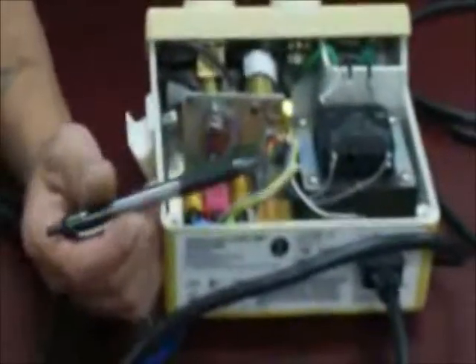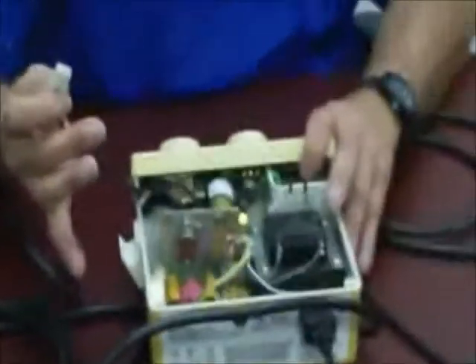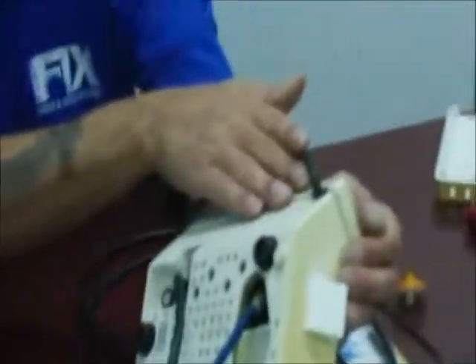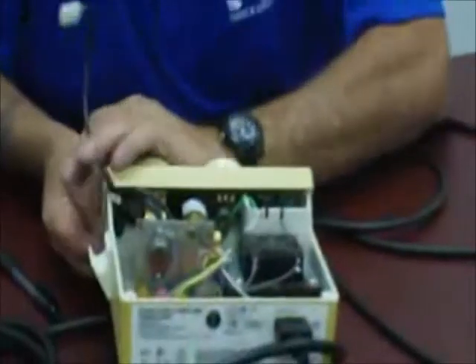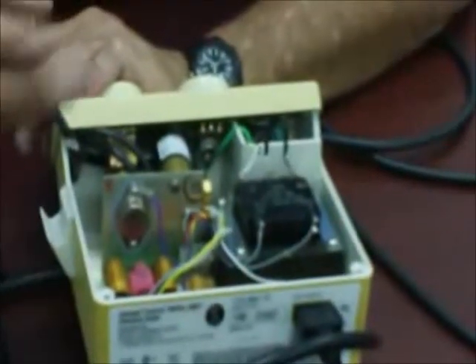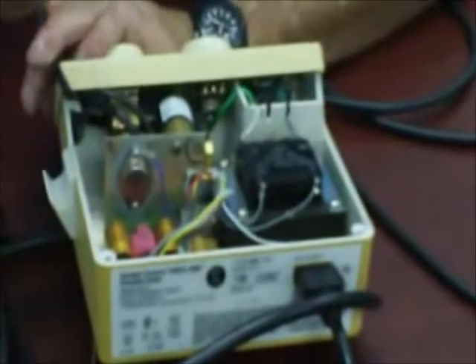Attached to your board is your handpiece lead — easy to change. When you get a new handpiece, it will come with the Molex plug on it. The handpiece interfaces with a grommet through the front of the machine for strain relief. You also have a water line inside that supplies water to cool the machine — otherwise known as lavage. It creates a halo and atomization mist similar to a high-speed handpiece, cools the tooth surface, and washes away scaled-off calculus and debris so it can be suctioned out.